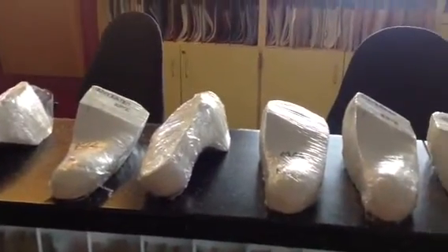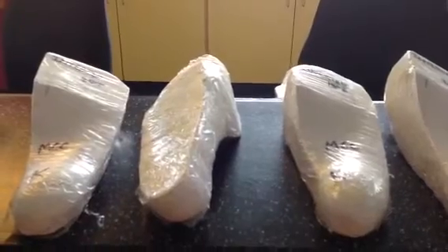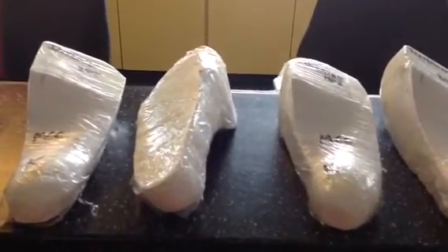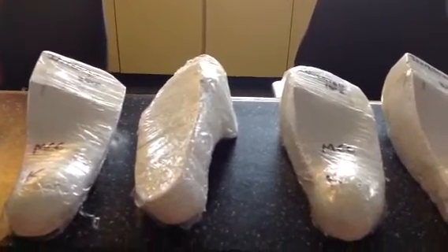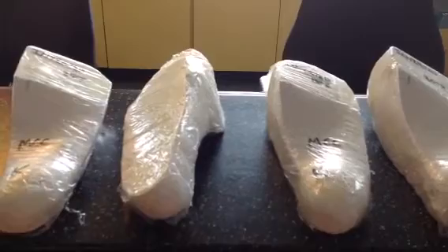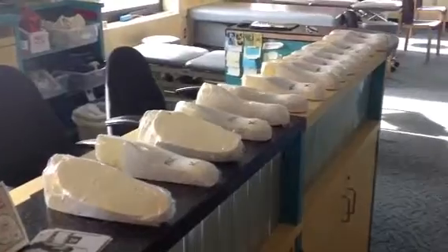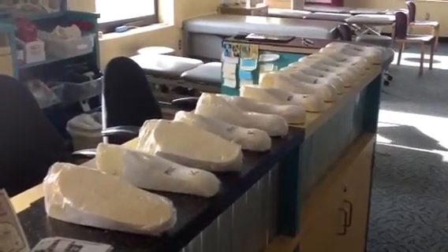I hope this helps you understand that if your practitioner is trying to correct for pronation, he or she has a lot of options in designing a comfortable orthotic — looking at your foot type, how high your arch is, how pronated you are, and whether you need any lateral support. I always use very deep heel cups. I have a lot of other information on the inverted orthotic technique on my blog. I hope this summary of these 15 techniques has been helpful. Thank you and have a wonderful day.